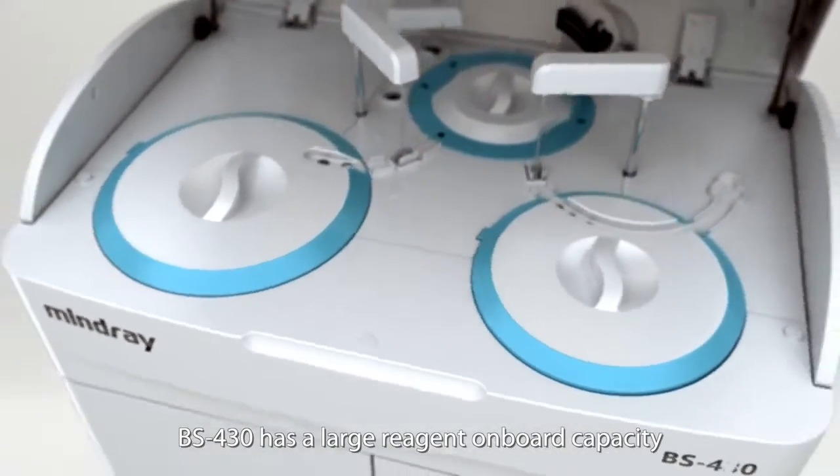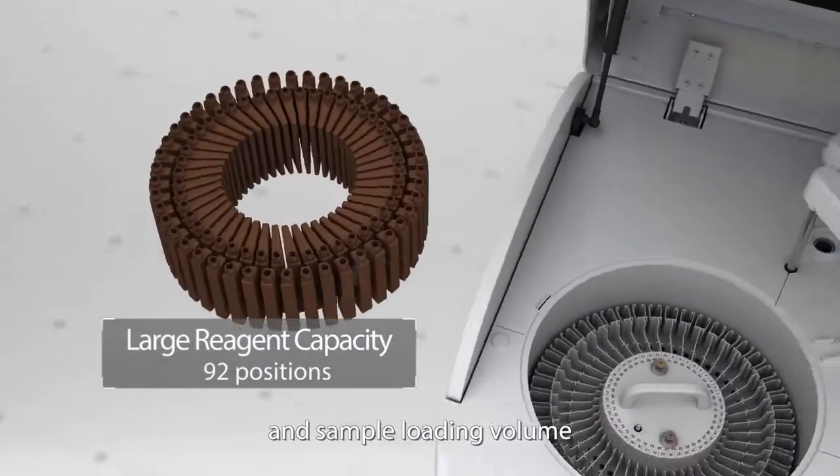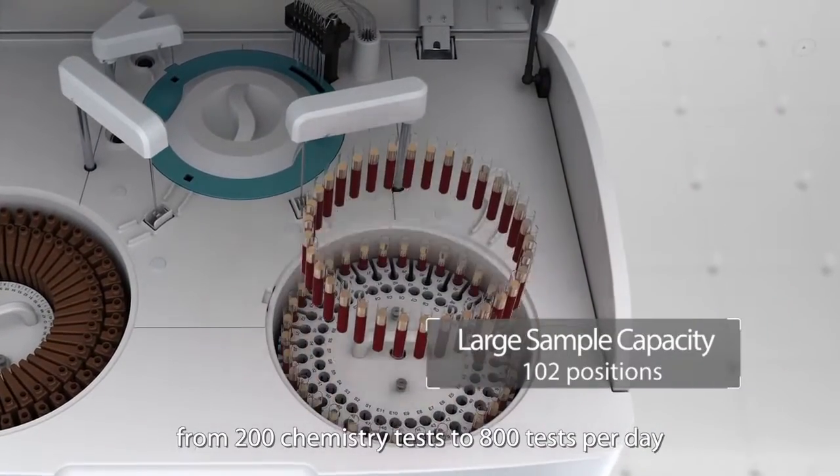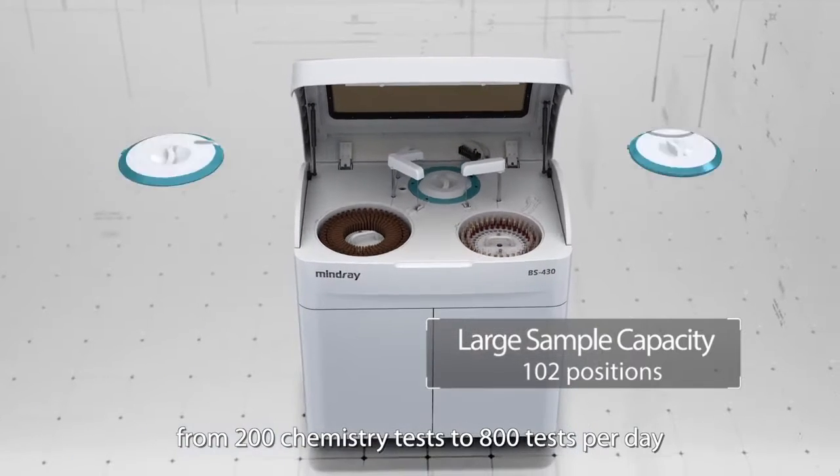BS430 has a large reagent onboard capacity and sample loading volume which is suitable for a wide range of laboratories from 200 chemistry tests to 800 tests per day.